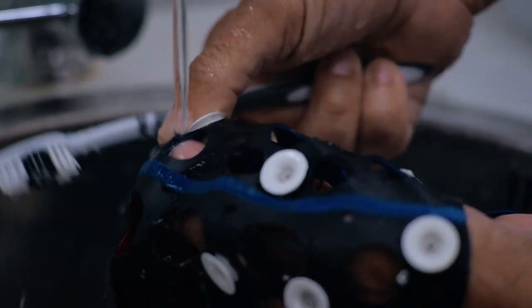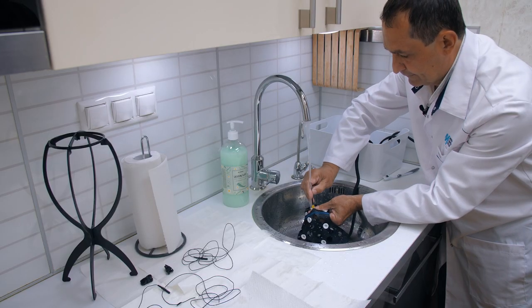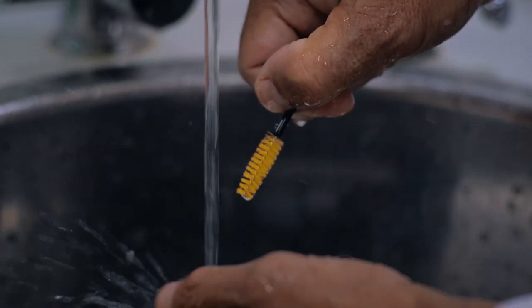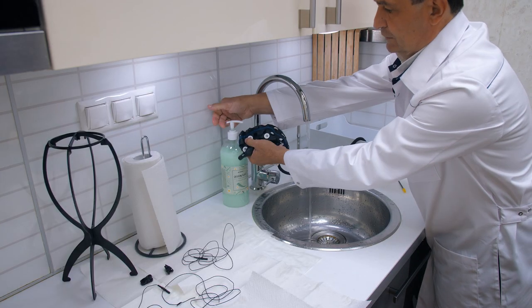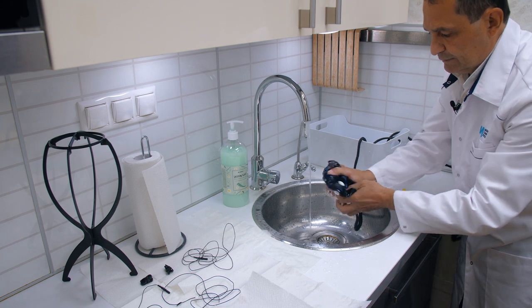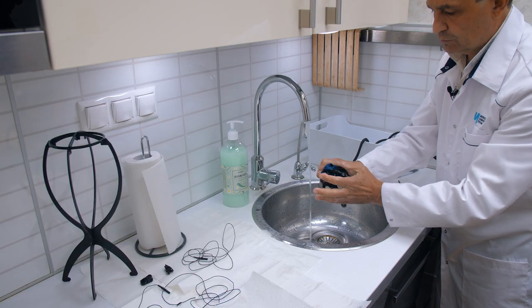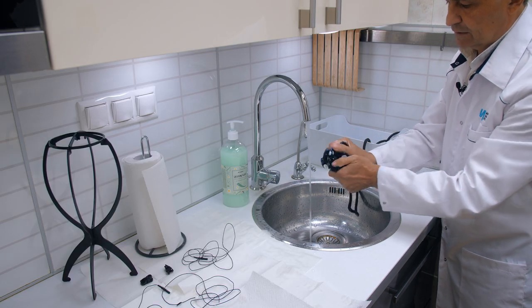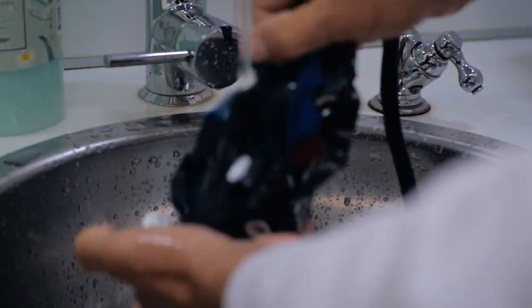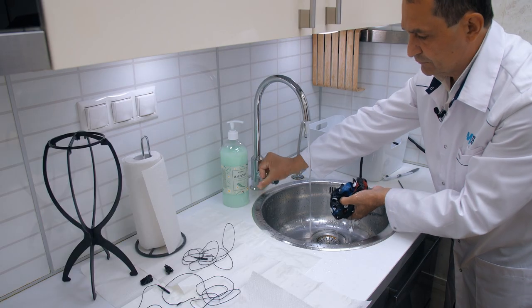If the gel dries, you will need to carefully and for an extended period wash off the resulting film. We proceed to clean the channels. You can cleanse using a weakened soap solution, because the oily and sweat secretions from the head remain on the inner surface of the cap. Once the cap has dried completely, it will need to be carefully treated with a suitable disinfectant solution.